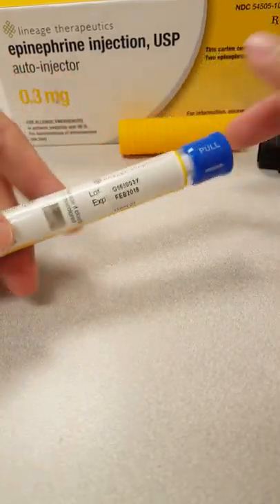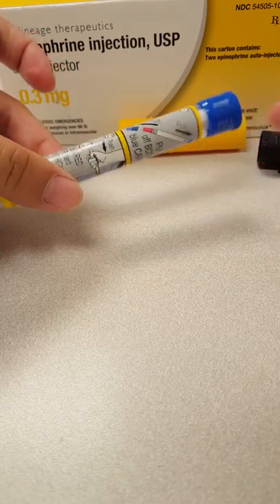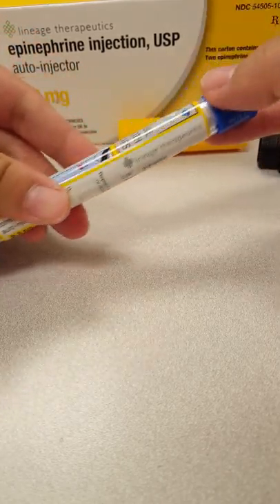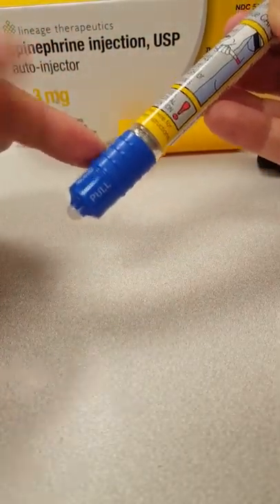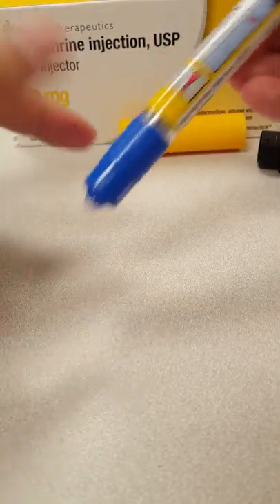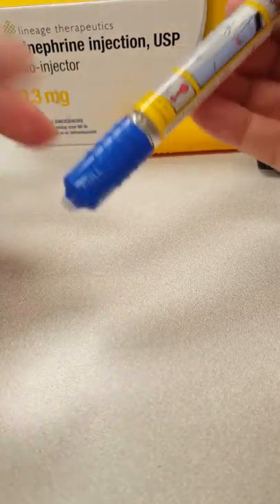I'm not going to take this off just because you need to keep this for emergencies. What you would do is first pull the top part off, and the part where the needle is — when you pull this off — it will likely be red or orange underneath there. Pull that off.